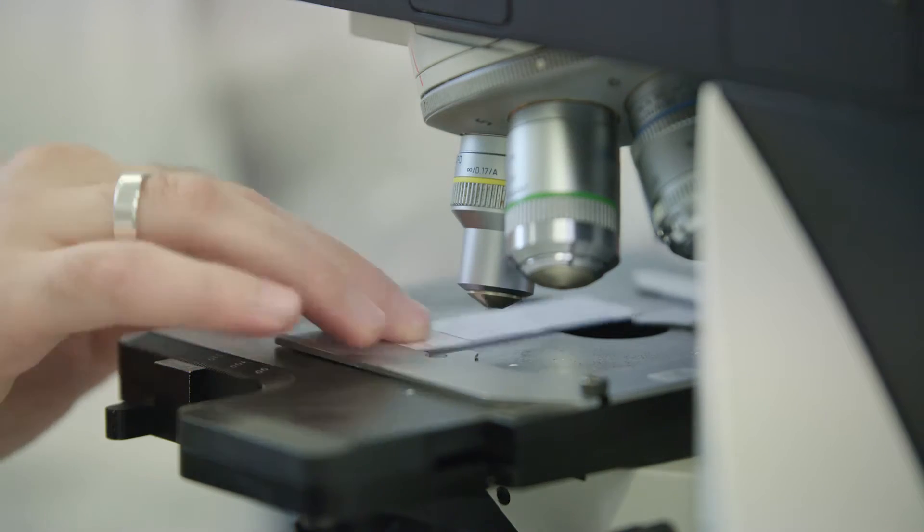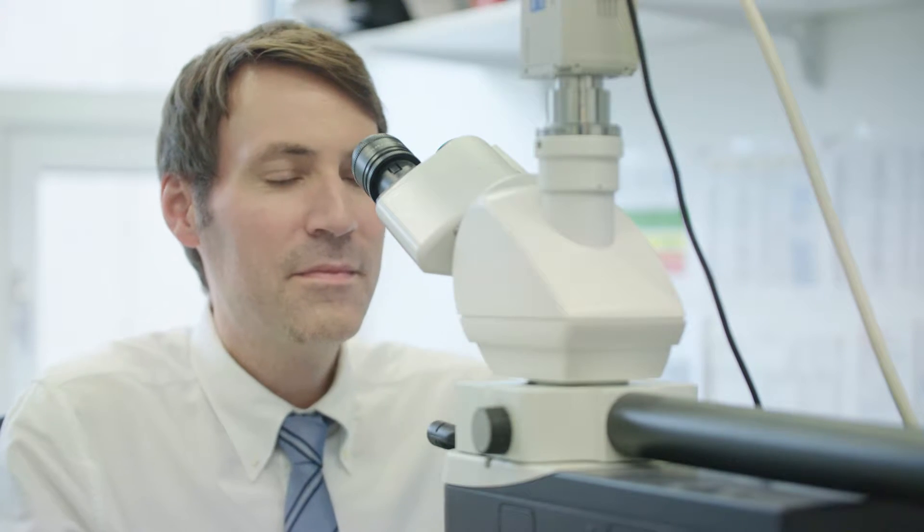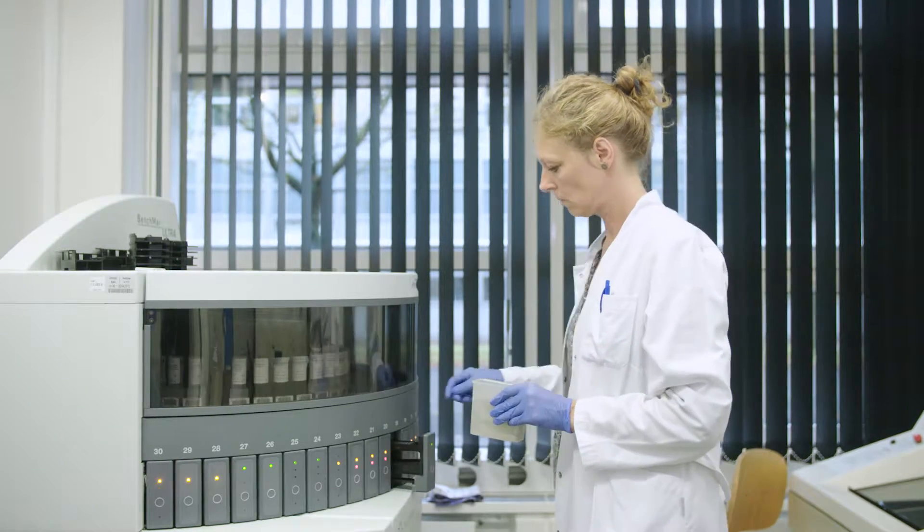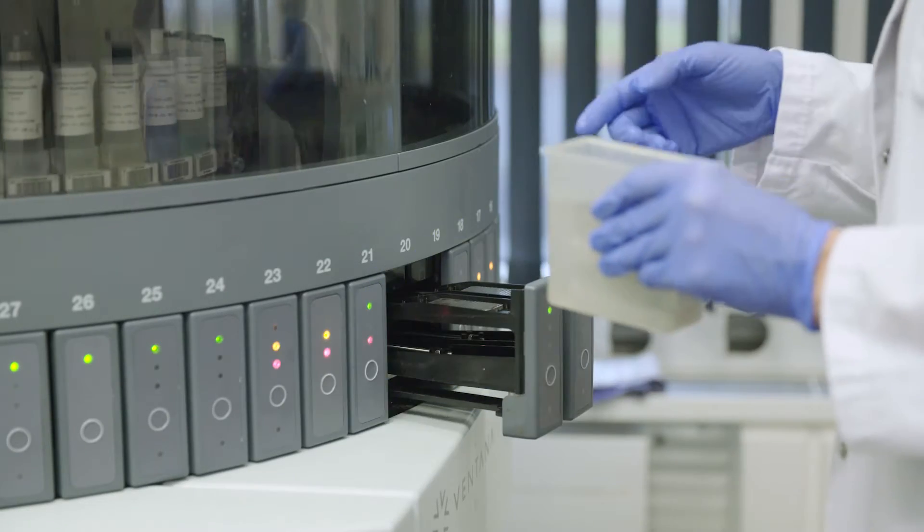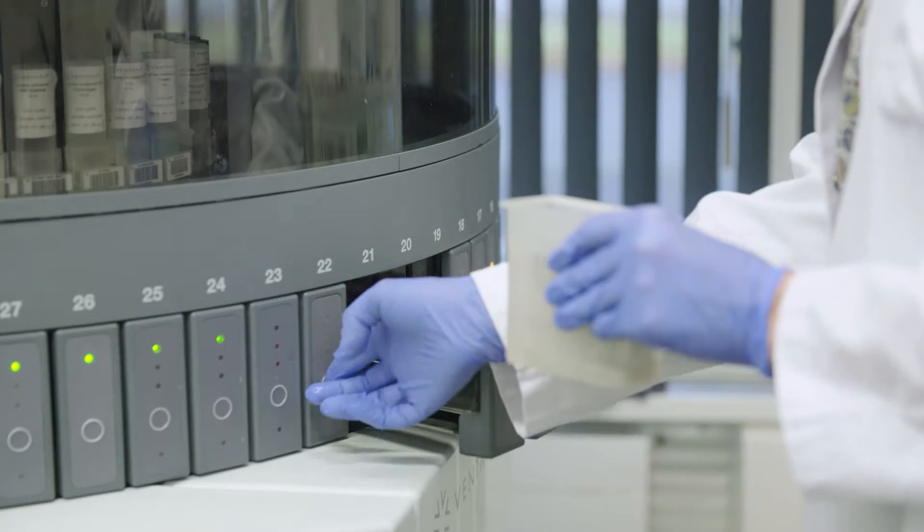Later, the cut material is analyzed by the pathologist under the microscope. For an even more precise diagnosis, further examinations, as for example the immunohistochemical examination procedures for the demonstration of specific proteins may be carried out.